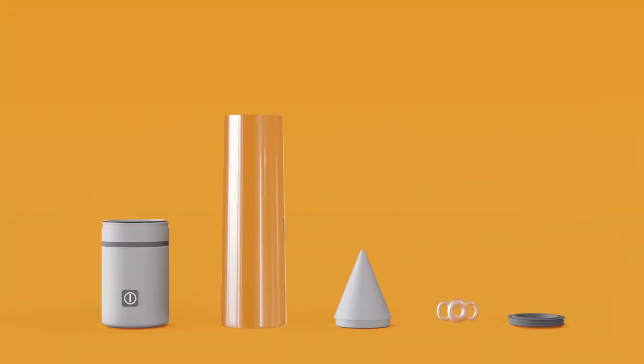Place the clear cylinder smooth end up on a flat surface. Insert the loading cone into the end of the tube.